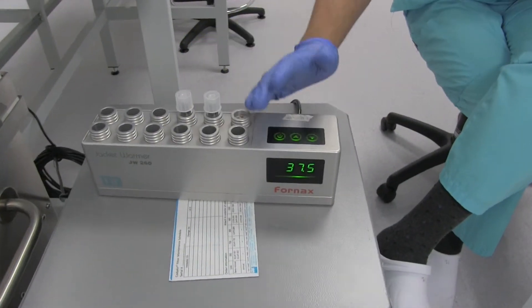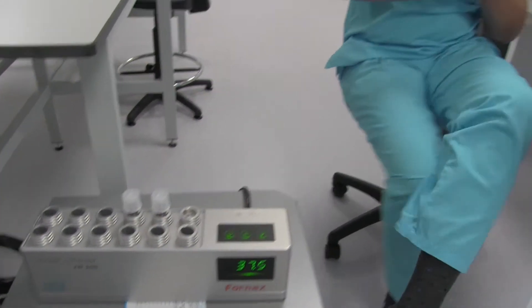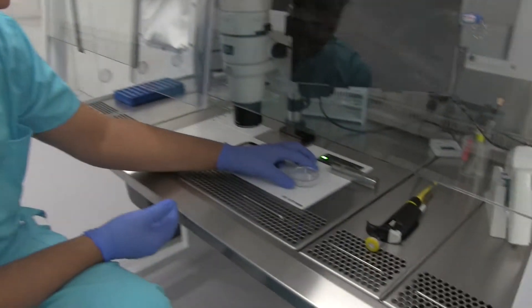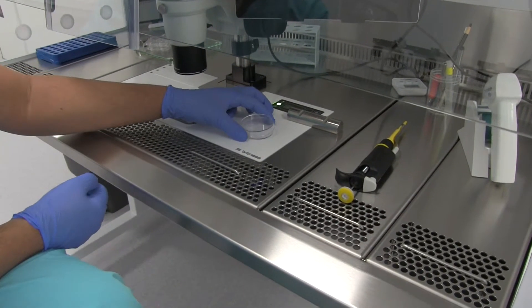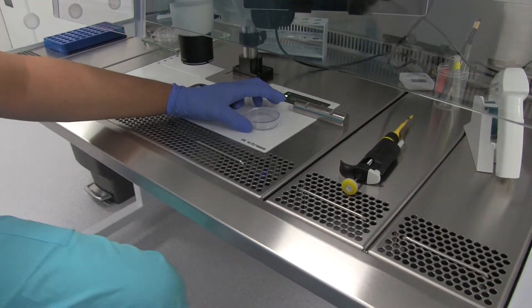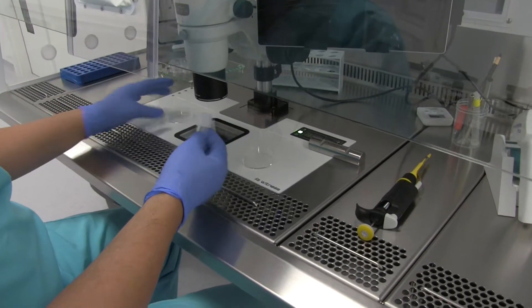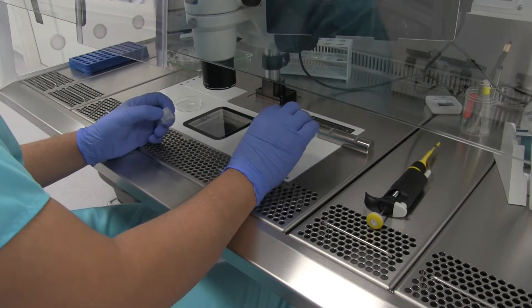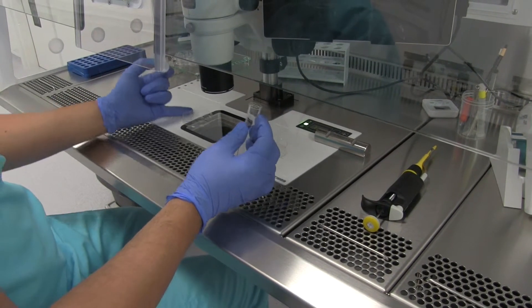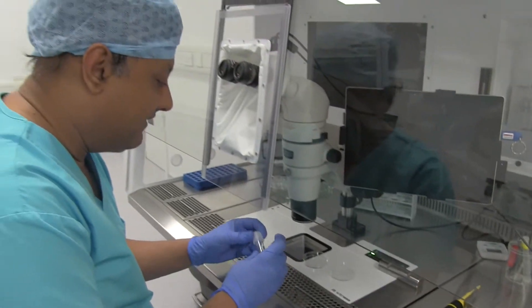So as soon as these tubes come in, they are put into this 37 degree warmer here. We would then have several of these round 60 millimetre dishes, which have been tissue culture tested, and we would empty the tube into one of these dishes and create a thin layer of follicular fluid using multiple dishes as needed.